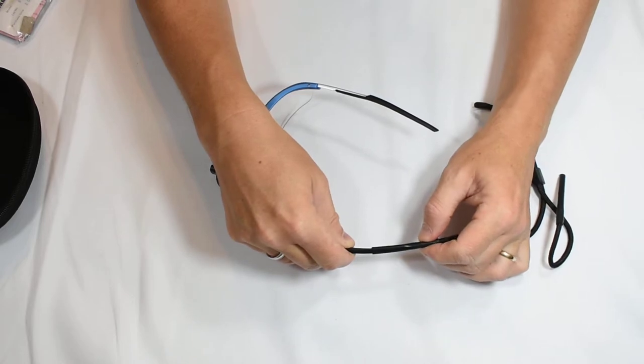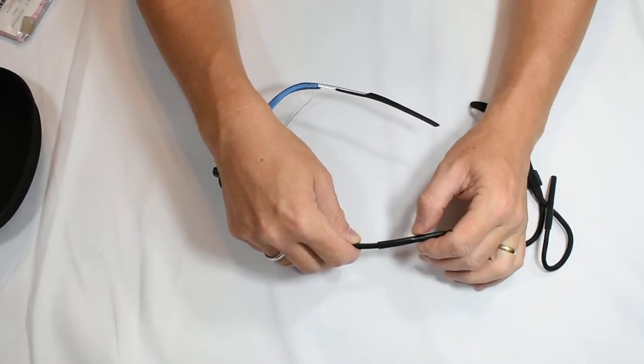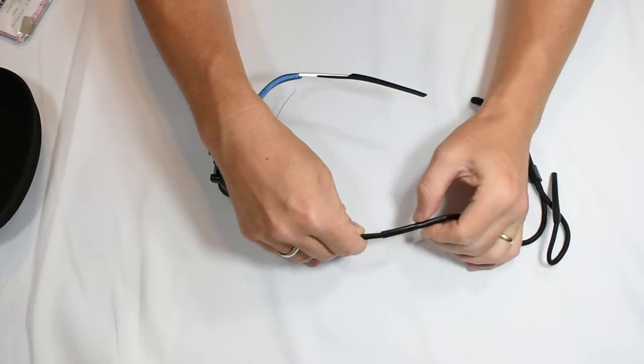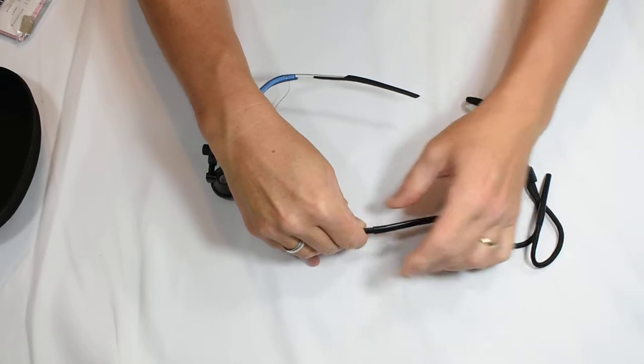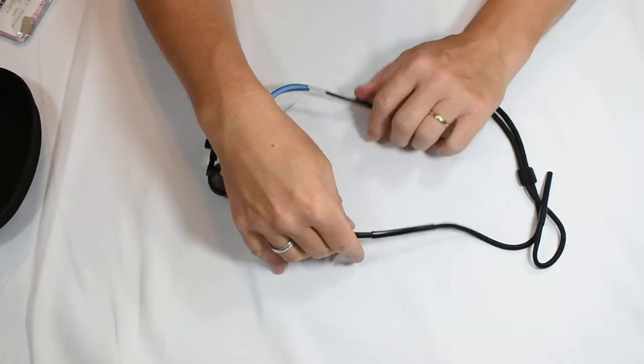You'll feel in the back where the strap begins inside the earpiece, so just slide that all the way in. Just a little sliding motion there until it stops.